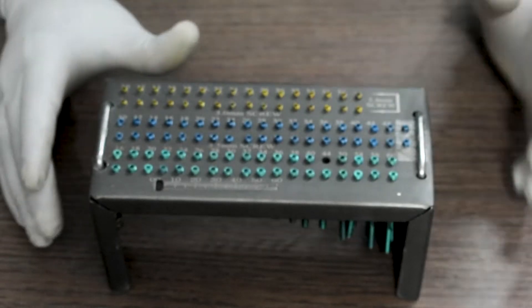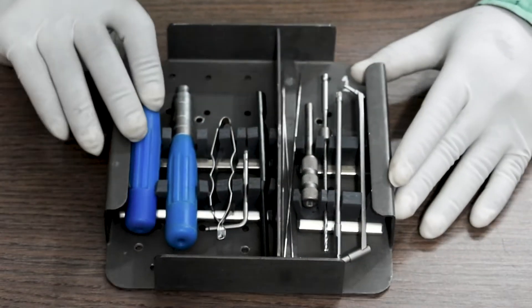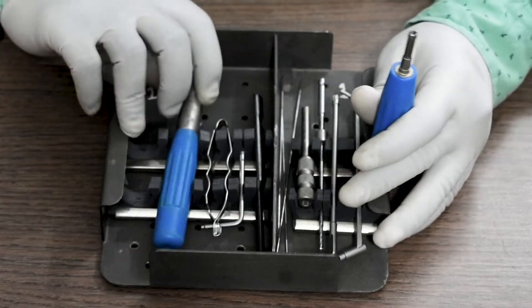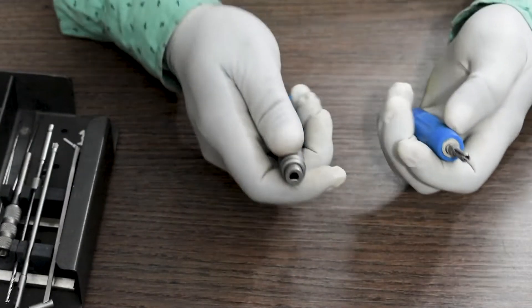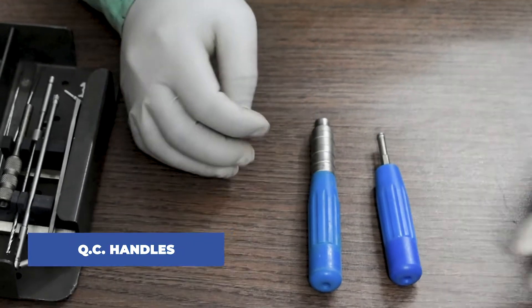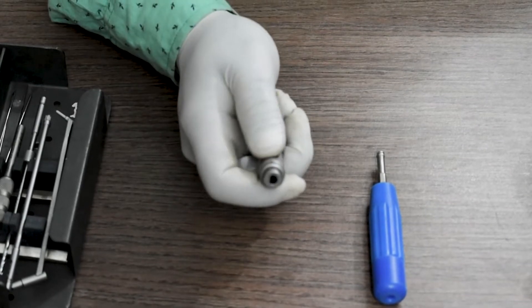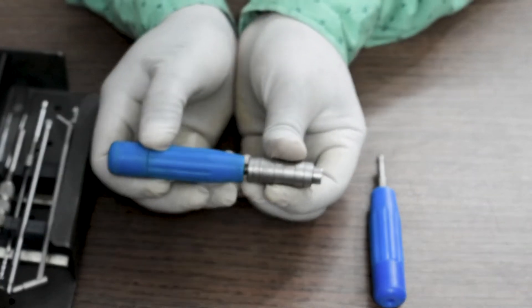Now coming to the instrument set, these are QC or Quick Coupling handles. It comes with screw holding and screwdriver attachments.